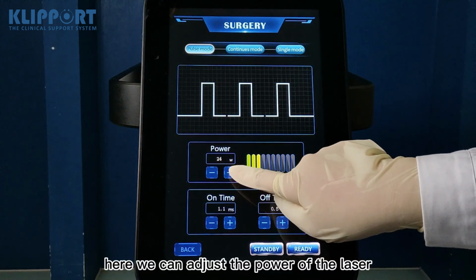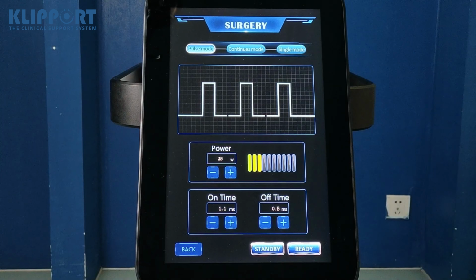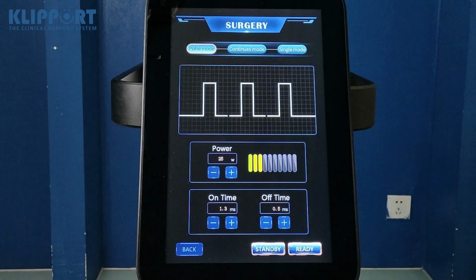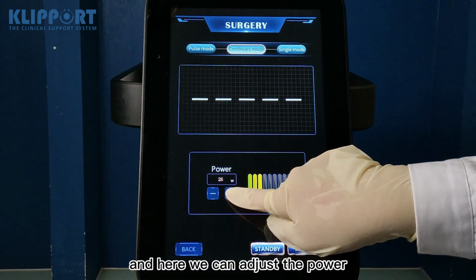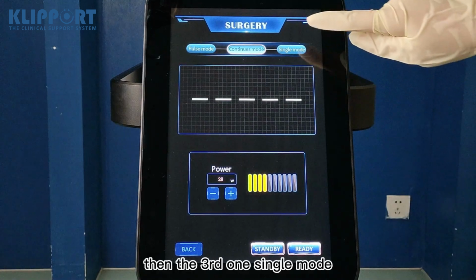Here we can adjust the power of the laser, add it or reduce it. And here is the on time of the laser. Here is the off time of the laser. Then the second mode, continuous mode. We click it, and here we can adjust the power. Then the third one, single mode.